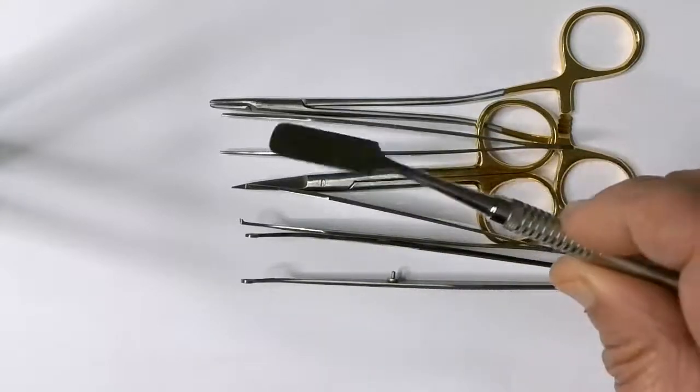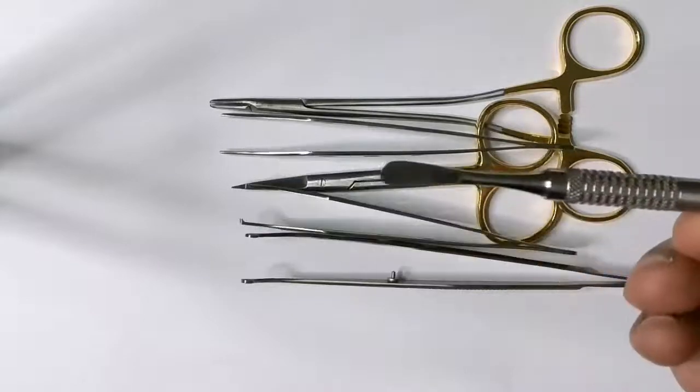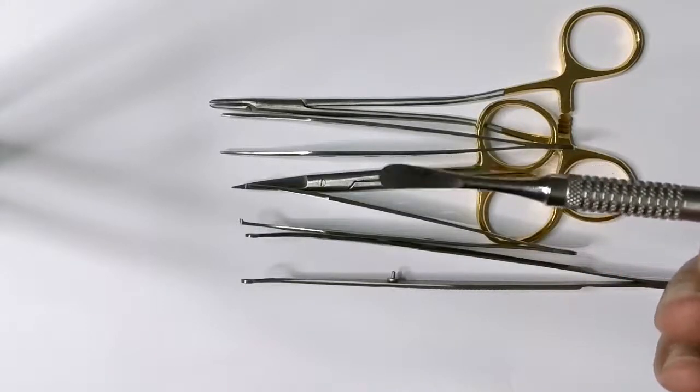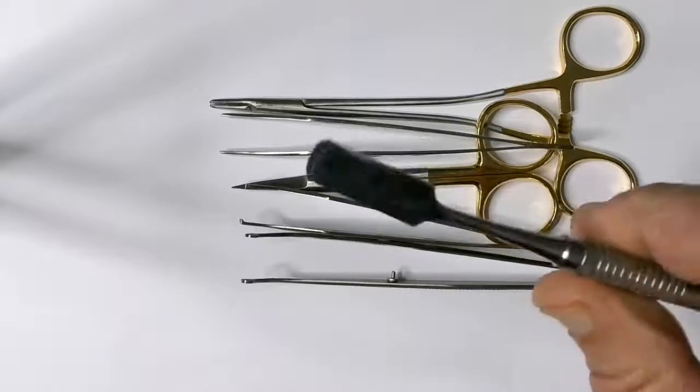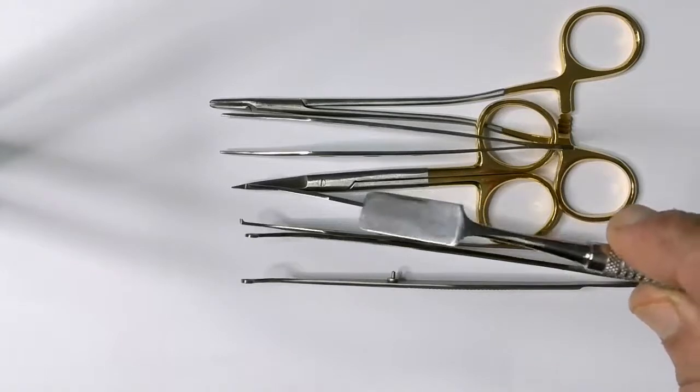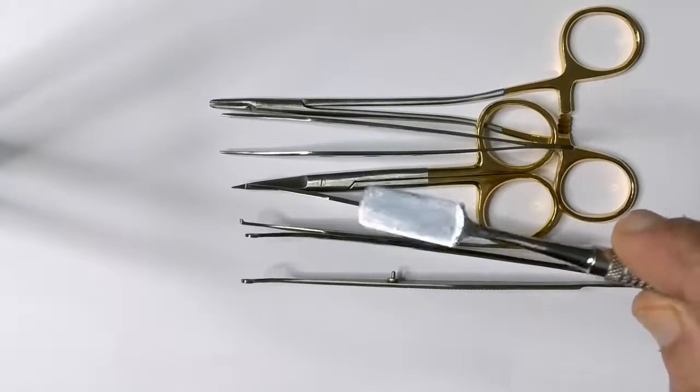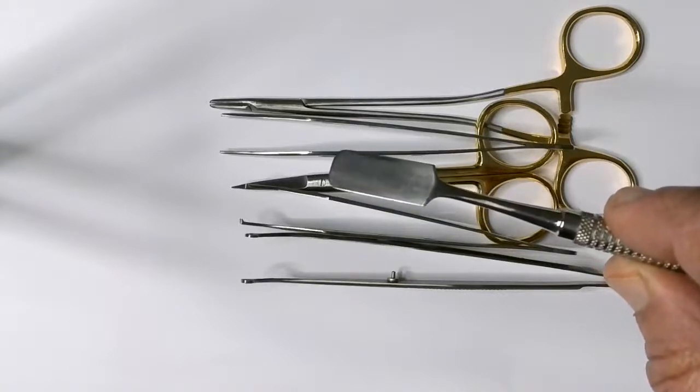Retraction. I like the Pritchard. These are called Pritchard retractors. One end of them is a periosteal elevator as you can see, and the other end is the Pritchard retractor. This Pritchard retractor nicely holds the flap when you're retracting before you start suturing and it is a nice instrument to have.